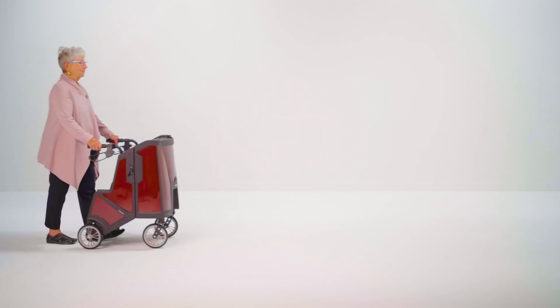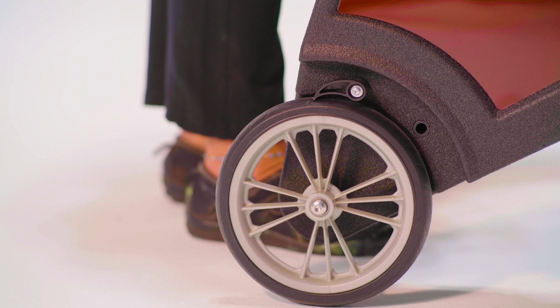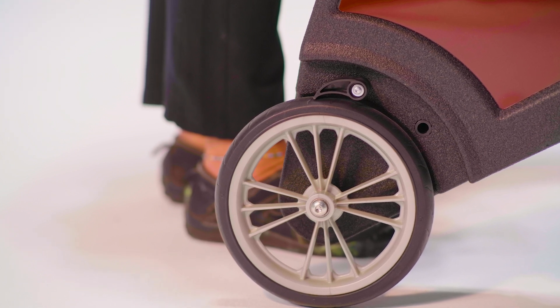When not using the brake, your wheels should spin freely without rubbing the brake. If the brakes do not function as described, or the rear wheels rub when the brake is not in use, follow these simple steps.